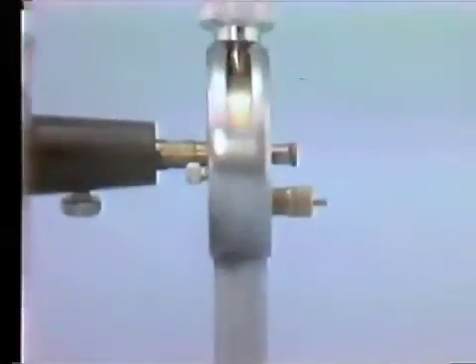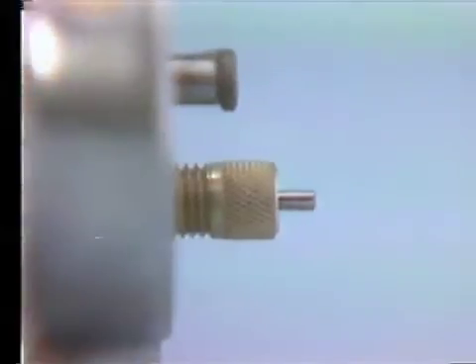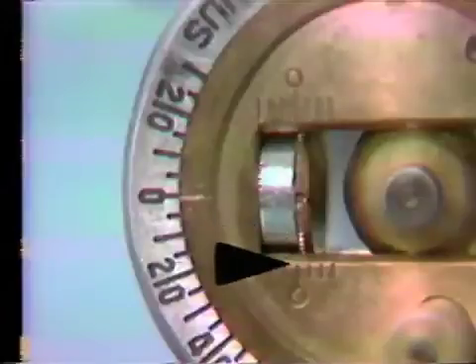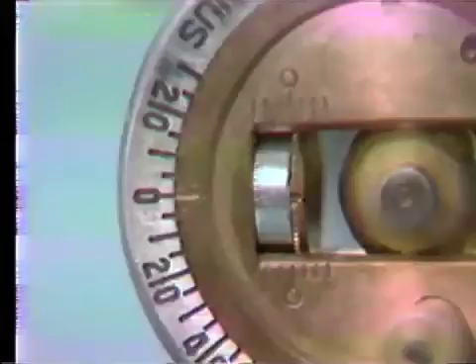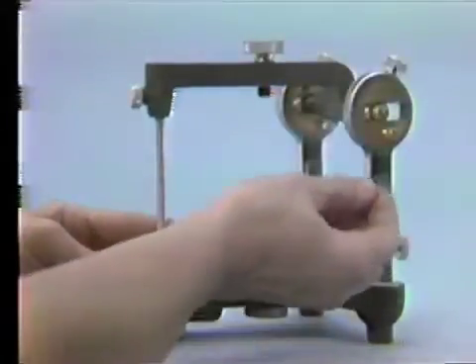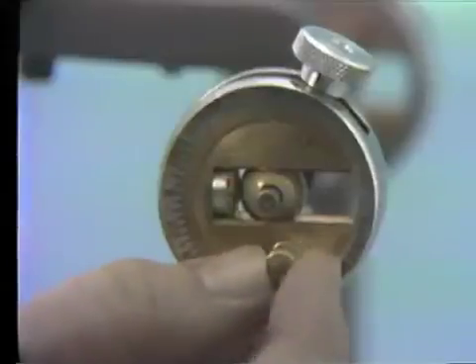The second step is to unlock the centric lock. Also, unlock the centric stop using the thumb screw found on the inner surface of the condylar guidance. Unless already positioned correctly, rotate the centric stop until its flat undersurface — the mesial aspect — is aligned with the zero reading on the protrusive-retrusive scale. In this position, the undersurface should be in contact with the spacer in the condylar slot, and the deep zero notch on the centric stop should be aligned with the zero on the horizontal inclination scale. After the alignment, pull the upper member of the articulator forward and tighten the centric locks bilaterally. The condylar elements must rest against their centric stops before tightening the centric locks.